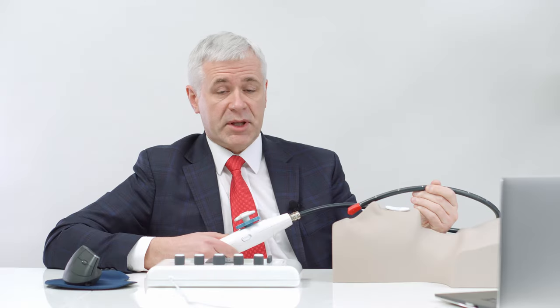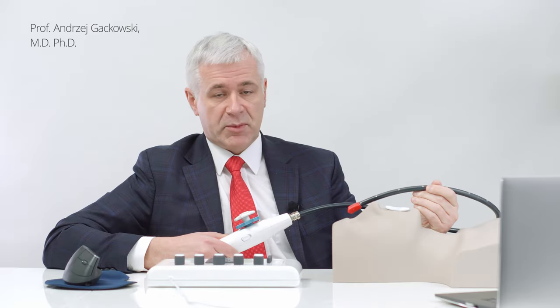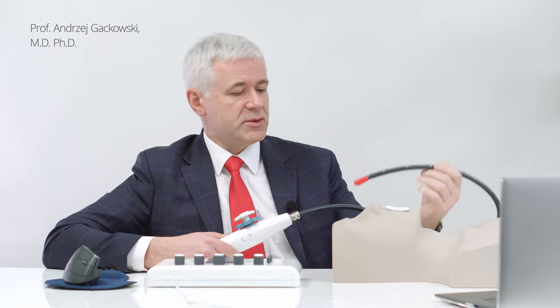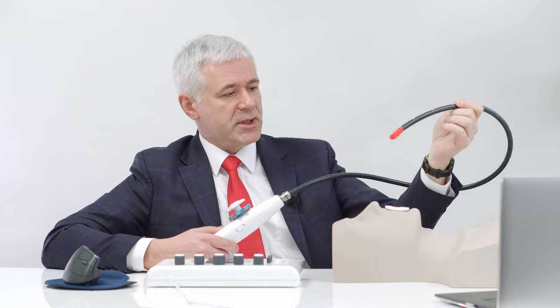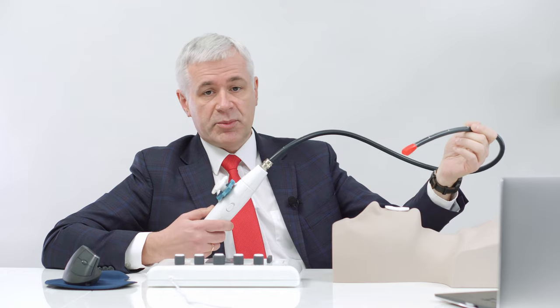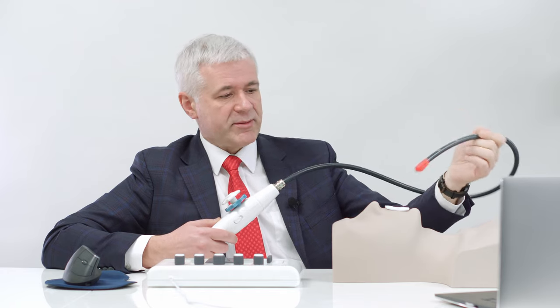Hello, it is my great pleasure to present the most realistic simulator of transesophageal echocardiography, which is called Mr. Timothy. We have here the TE probe — a simulated TE probe — and the phantom.